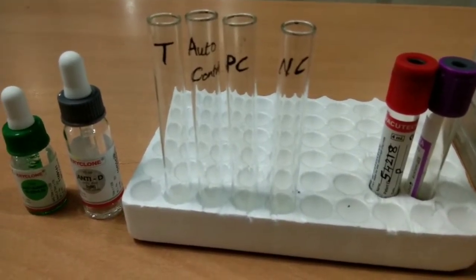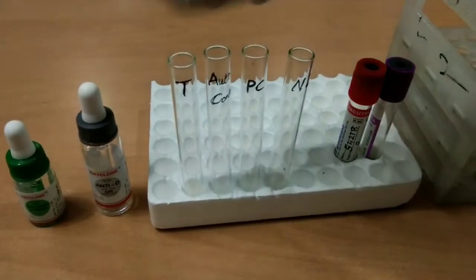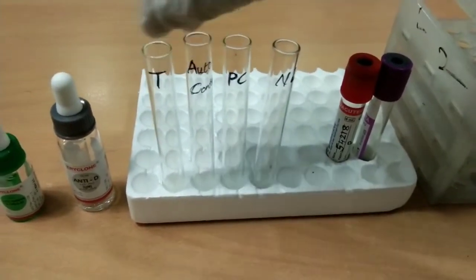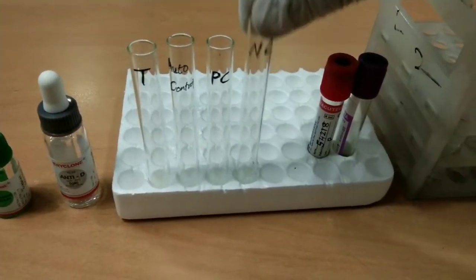Take four test tubes and mark them as T for test, auto control, positive control, and negative control.